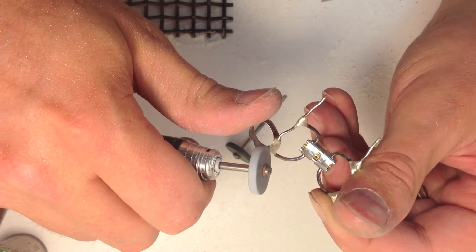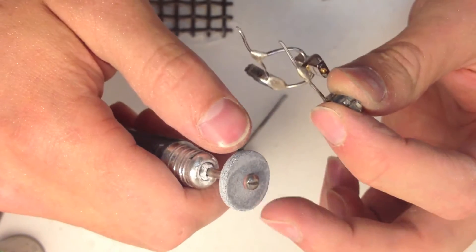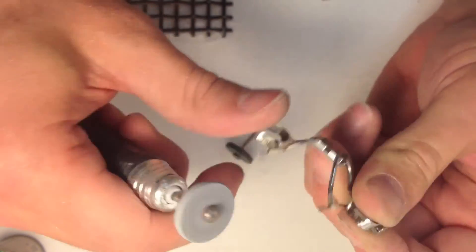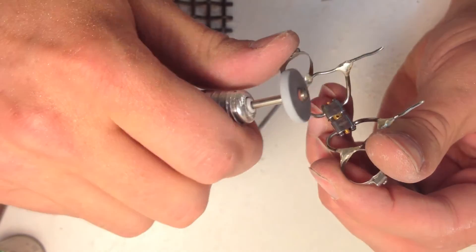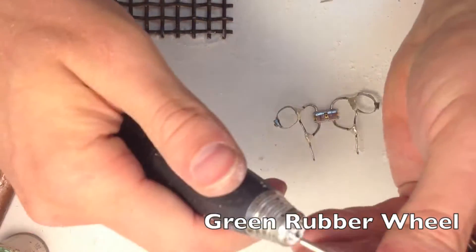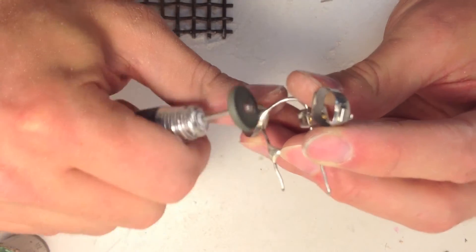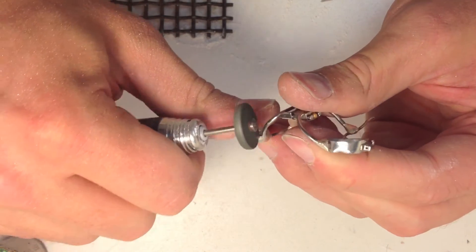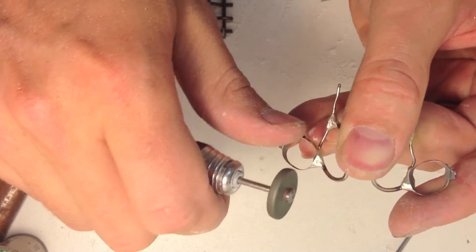It's trying to make everything as smooth as possible. Your main goal with the stone, this is a heatless stone, is to just knock off the excess, the stuff that you don't need. Of course, you want this to be as comfortable as possible in the mouth. Alright, go to the rubber wheel. Don't go through the band - that's very bad.